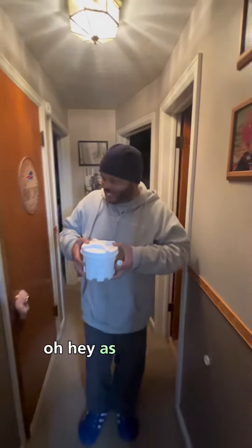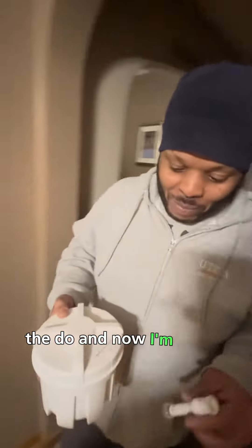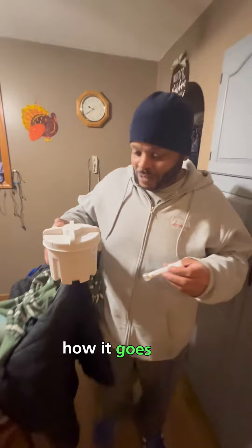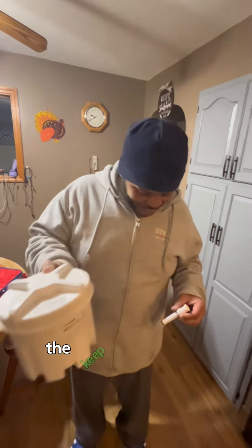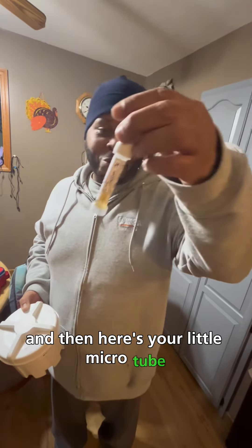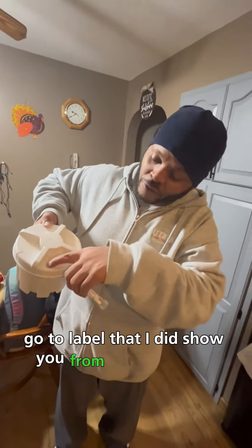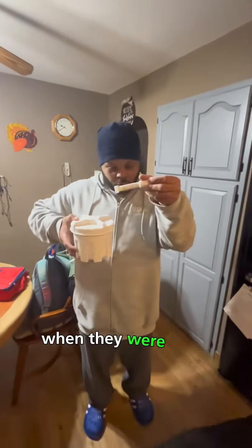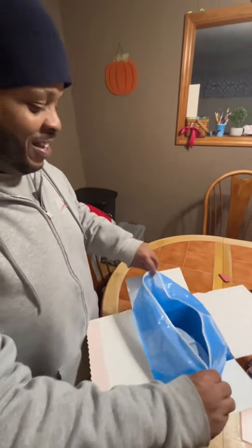I just got done doing the do and now I'm about to put it in the box. Here's your container with the dookie inside of it with the preservatives to keep it preserved, and here's your little micro tube for a closer examination. This is what it looked like. They're going to label that — I did show you from the first video where they go: one label right there, one label right there.